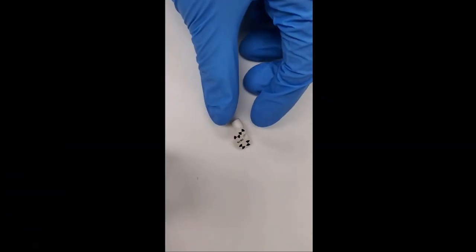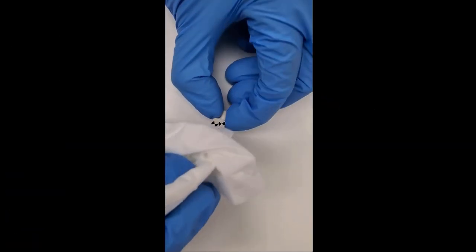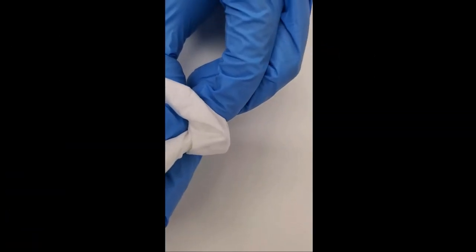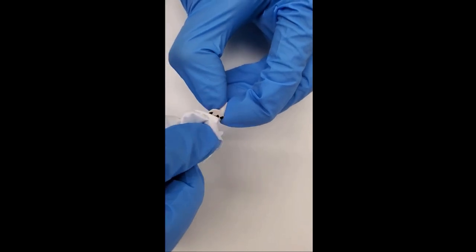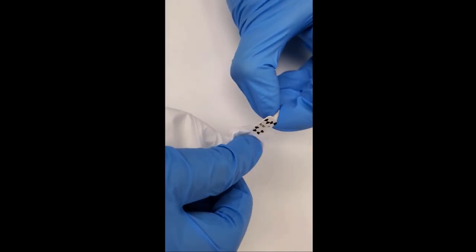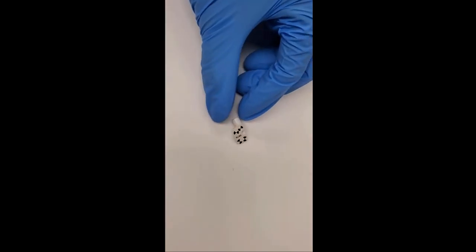If the scan bodies are not detected by the camera, clean the scan bodies so that the OptiCode is visible to the camera or try to clean the camera lens.